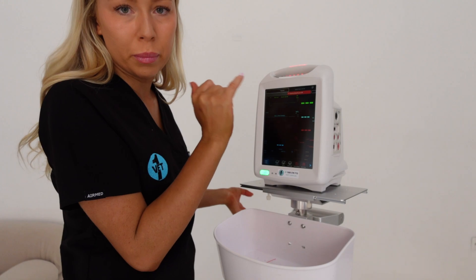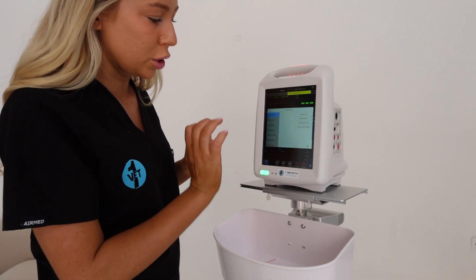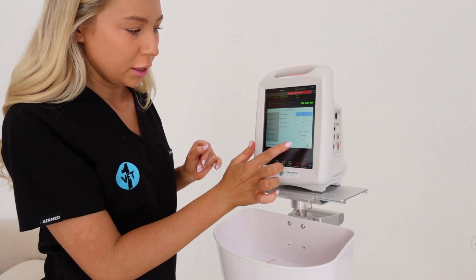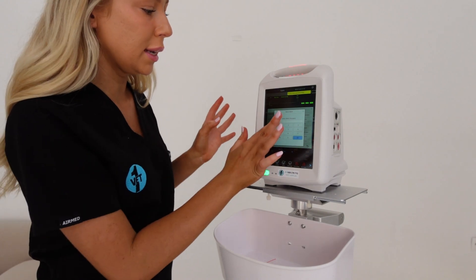There's an easy on/off button down here on the bottom. When it's turned on, it's come up that my printer is out of paper - I haven't installed the paper on that one. I'm going to go to Options and show you how it runs in demo mode. Going to the options button, normal function, and scrolling down to demo mode. It's all touchscreen so it's nice and easy.